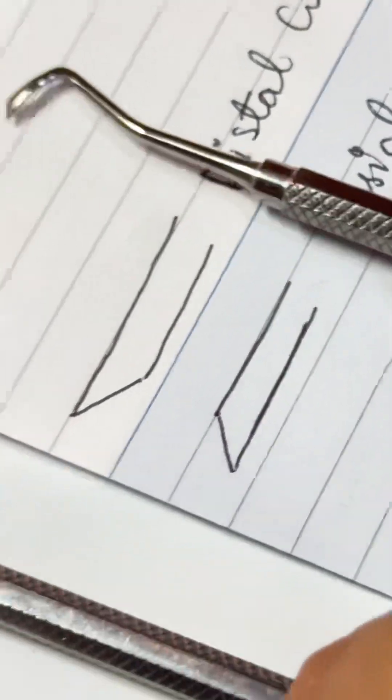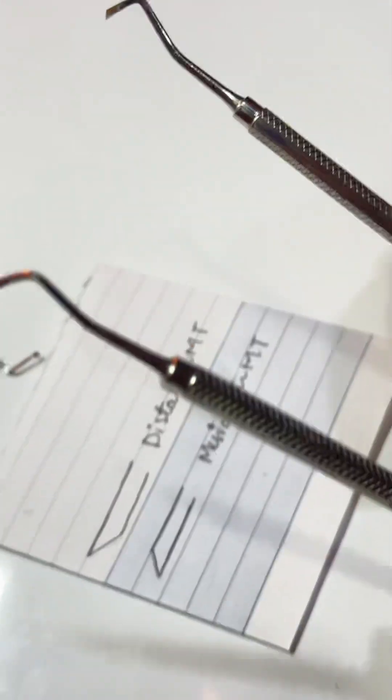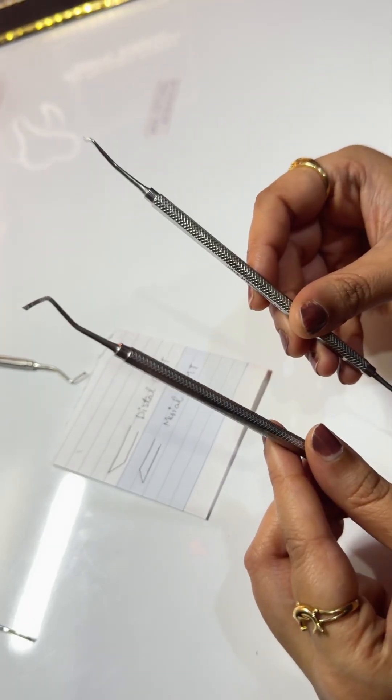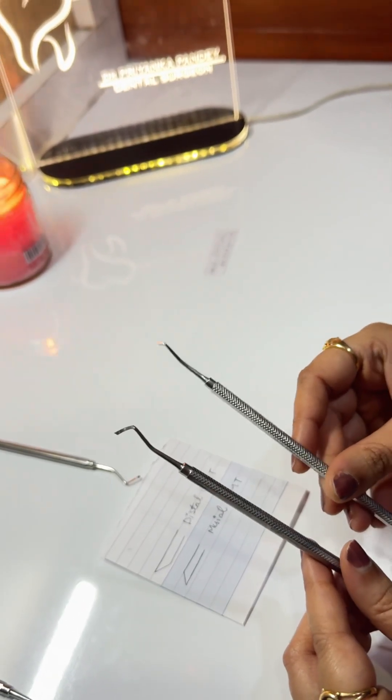I hope it is clear which is distal and which is mesial GMT, and you will be able to explain to the examiner in your exam. What is the function of mesial GMT? It is used in beveling the axiopulpal line angles of class 2 preparation.